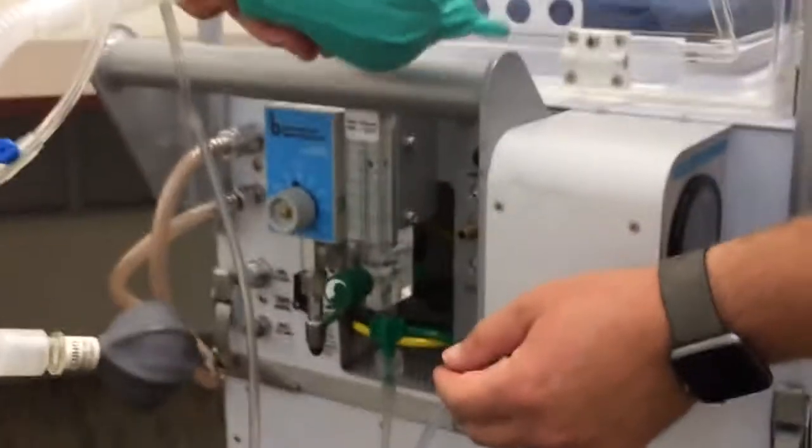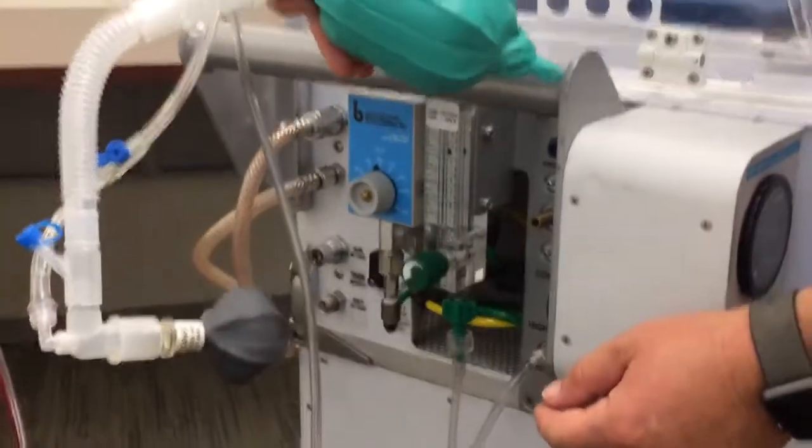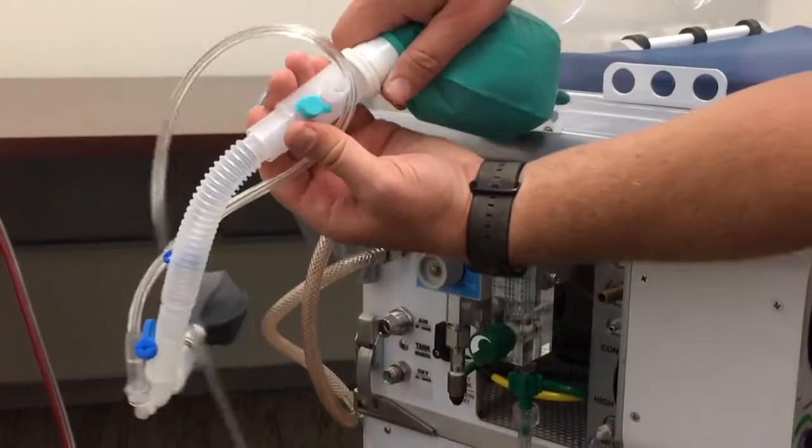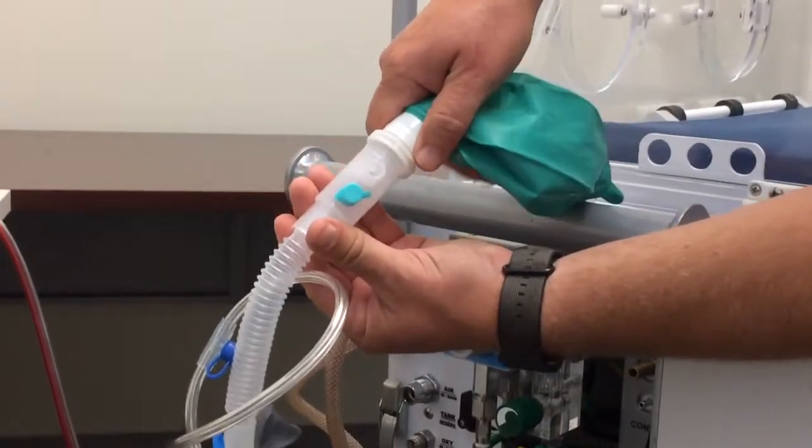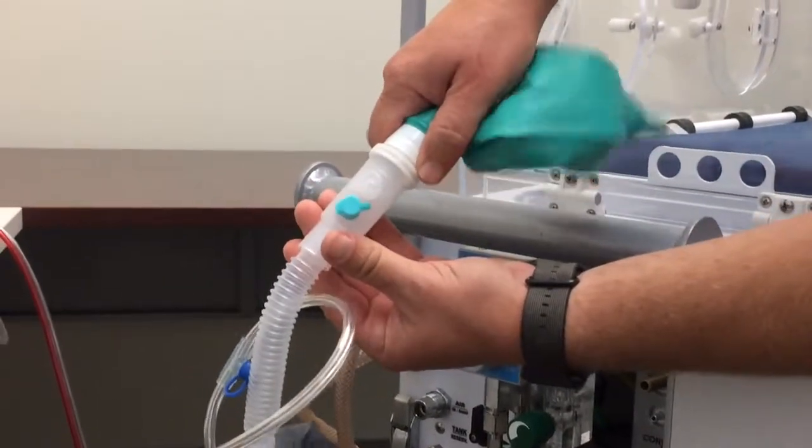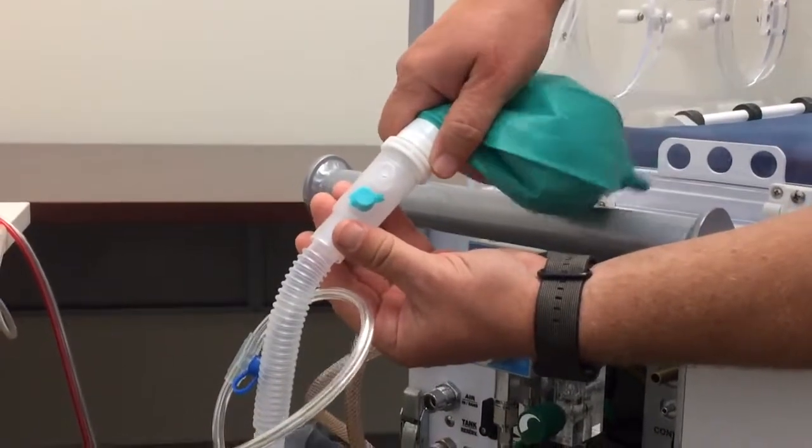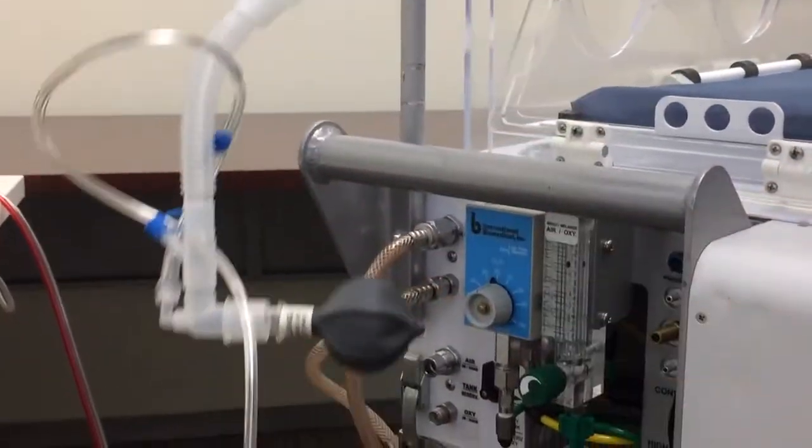Then you can bag the patient from this. You've got a pop-off up here that you can turn to change your pressure. I like the old-style anesthesia bags.